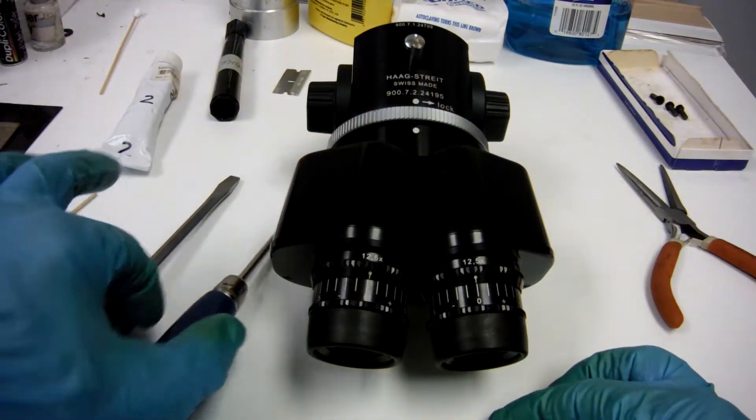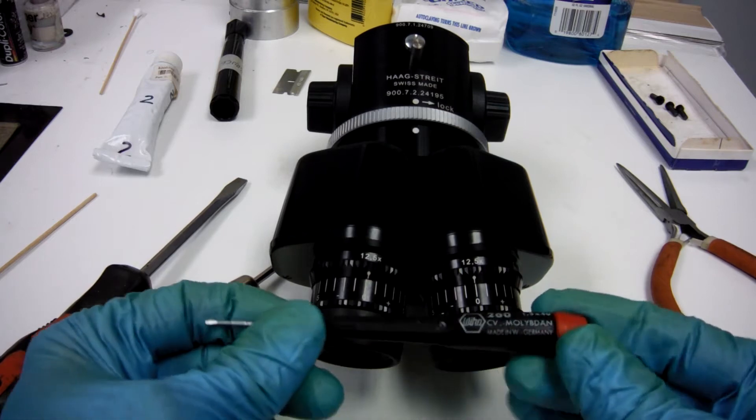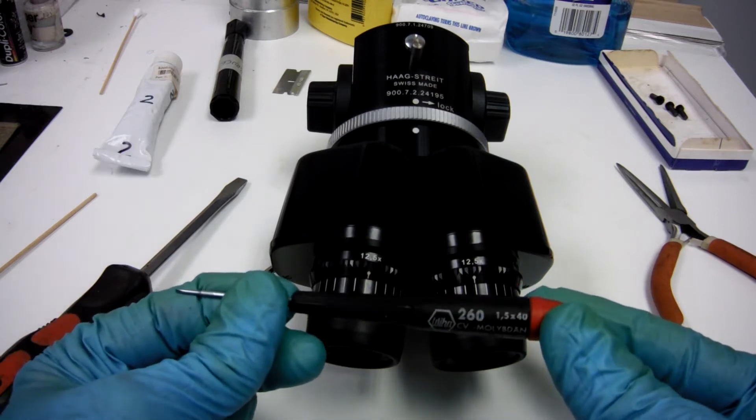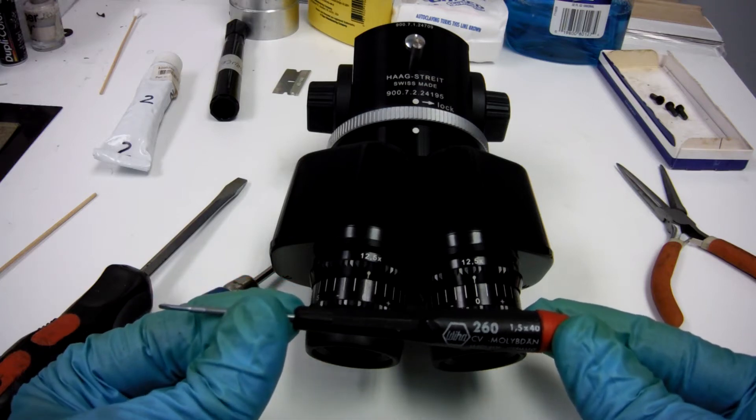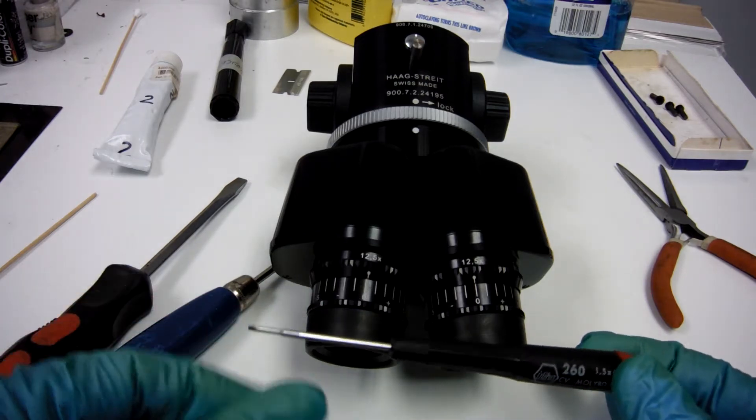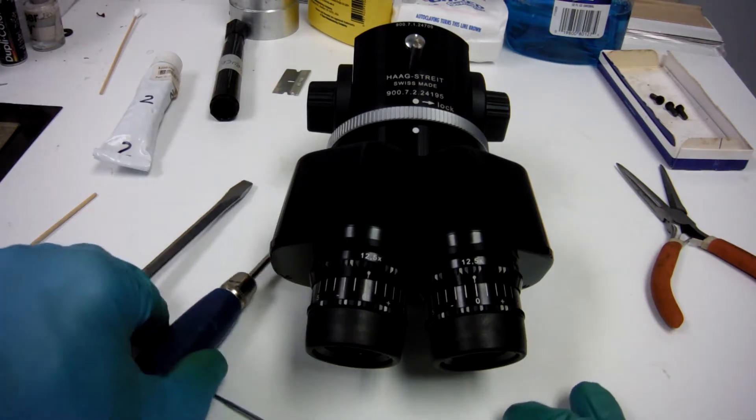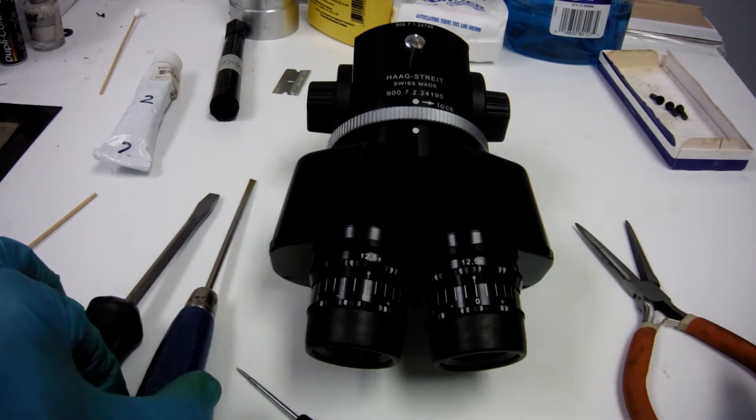To do this we only need a few things. We're going to need a jeweler screwdriver. This one is 1.5x40mm, if that makes any difference, but it's really small. You're going to definitely need that and a needle nose and a couple of screwdrivers.